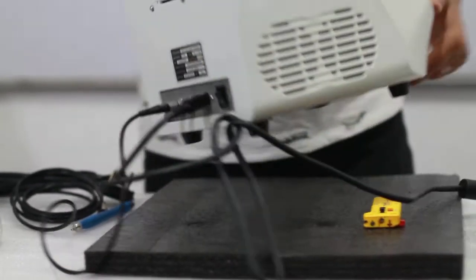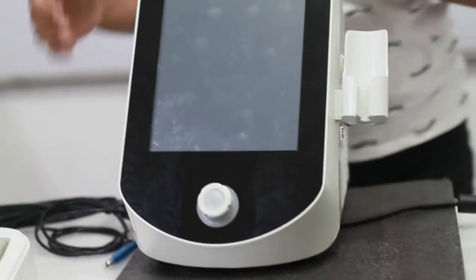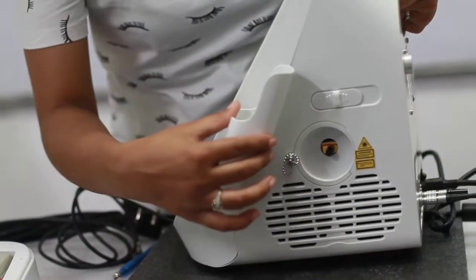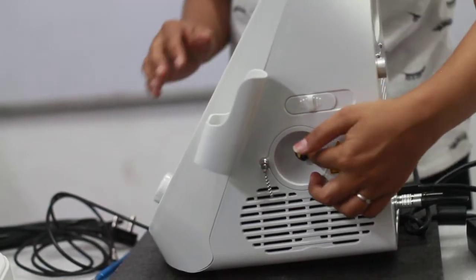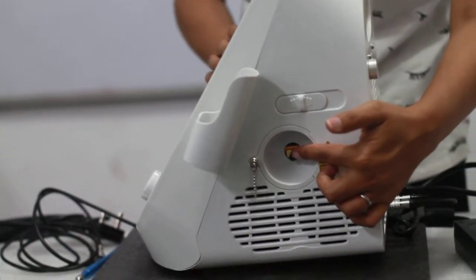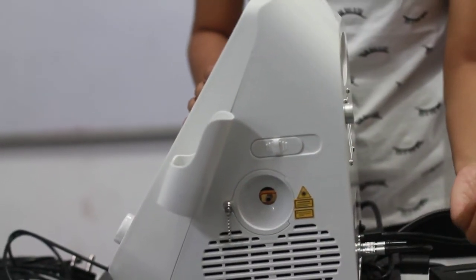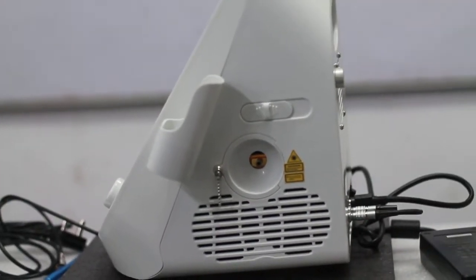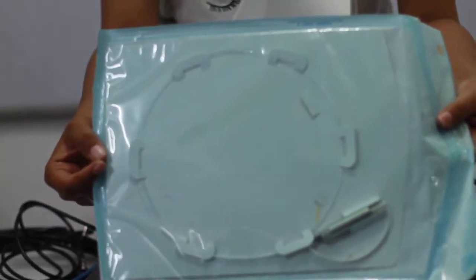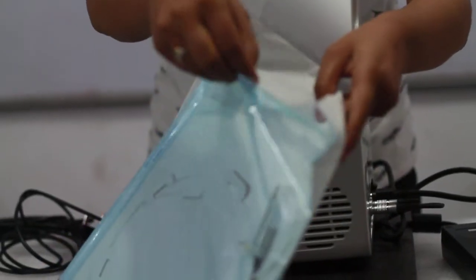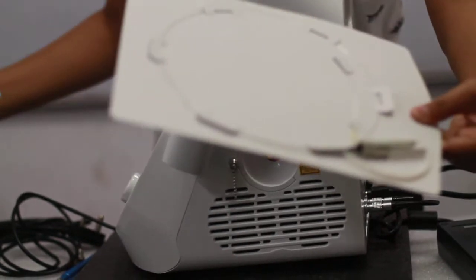Once this whole connection is done, rotate your machine. Once you rotate your machine towards the side where you have connected this stand, you can see an opening which is being primarily covered by a plastic connector. You can just take it off and then you require a fiber. You will receive the fiber like this. You can see on this side, you have to open it from this sleeve. Once you will open it, take this whole sheet outside.